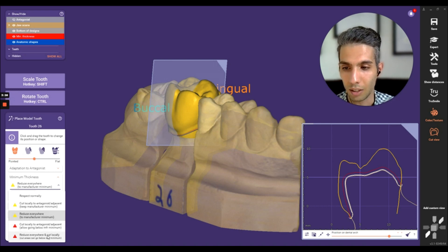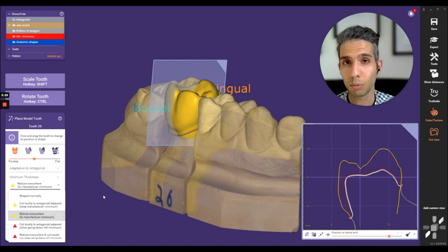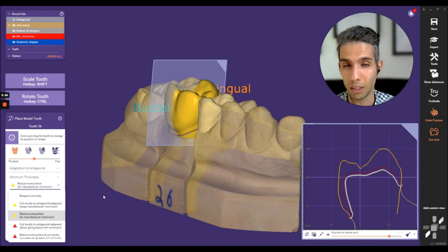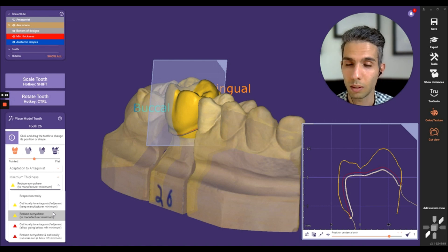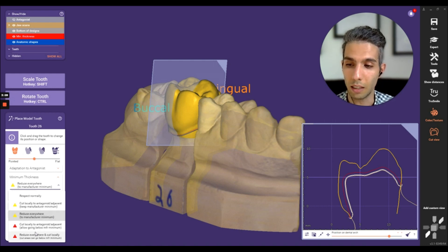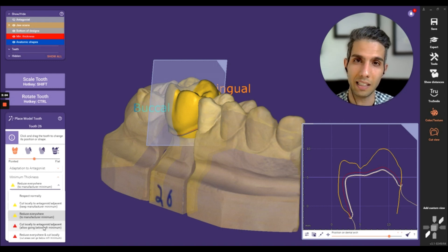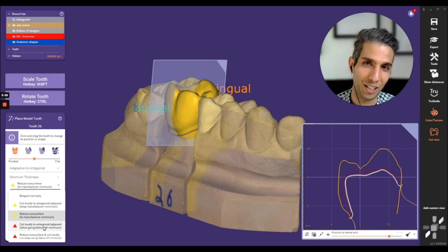The two other options with red triangles are exceeding the minimum thickness — the minimum allowed thickness that is set by default by the manufacturer. With the yellow ones, the software will keep within the allowed parameters, but with the red ones it will exceed them and make it thinner than is actually allowed by the manufacturer.